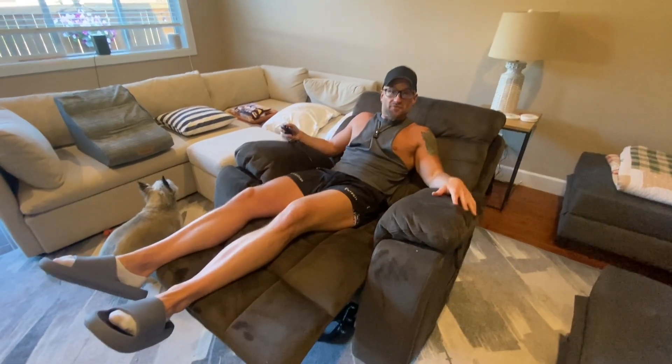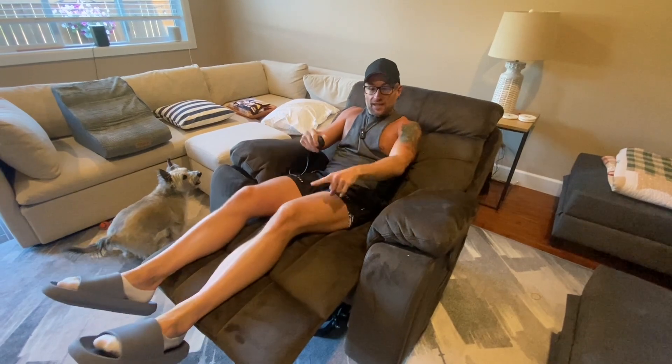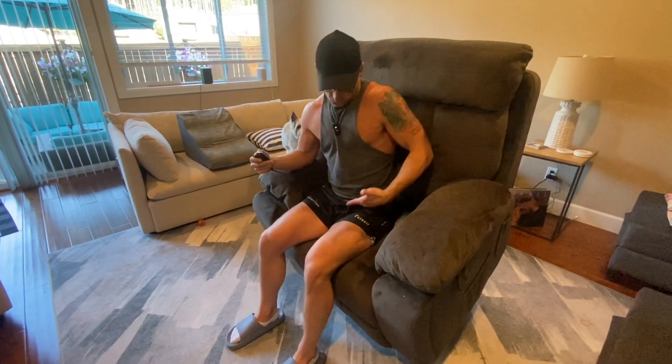This is probably it for you, so enjoy it. It doesn't just recline all the way — let's face it, some of you could have issues getting up. We don't have to worry about that anymore. Look, it's going to get up for me. It does all the work; all I have to do is just put my feet forward once I'm up.